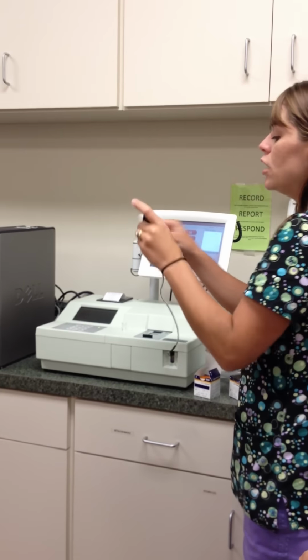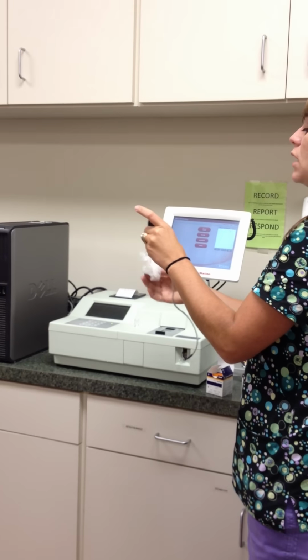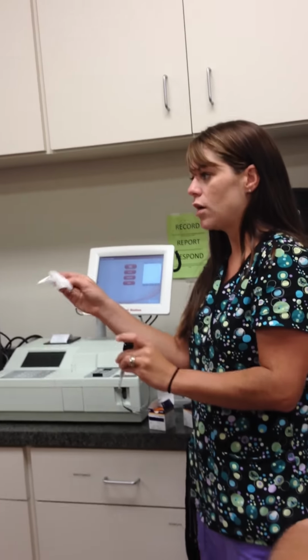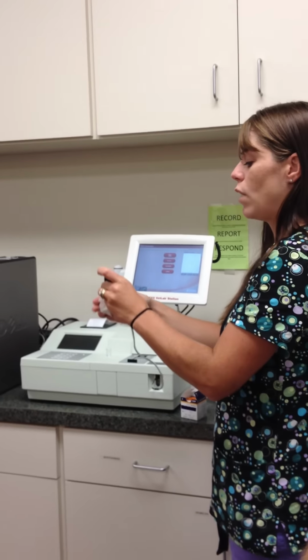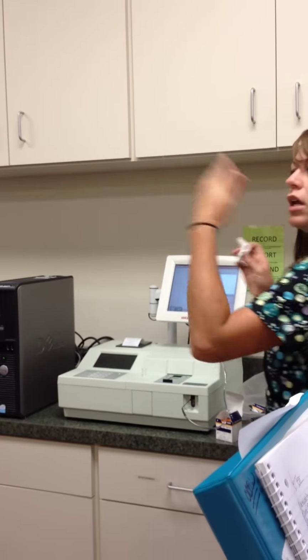Okay? Be quick with it. Because then it screams. And then it gets mad. You're taking too long. And don't do this, because if you do this, this absorbs any of the material that's in here, and it will pull out excess sample and throw off the results as well. Okay? So wipe down the side once, stick it in. And then once you stick it in, it'll start to run.